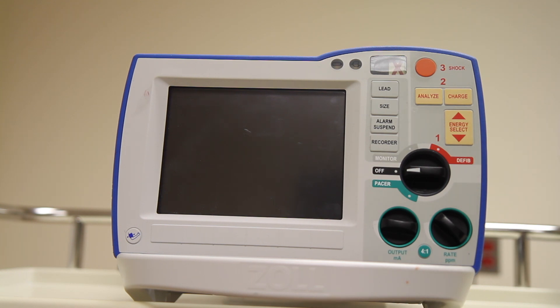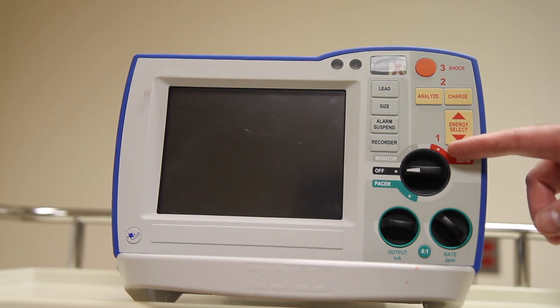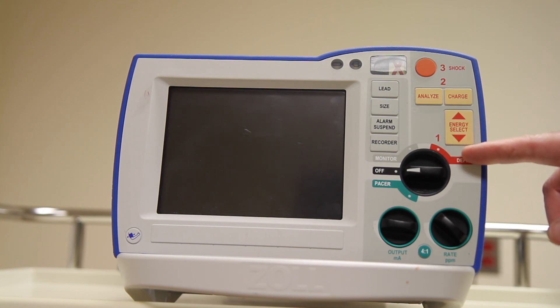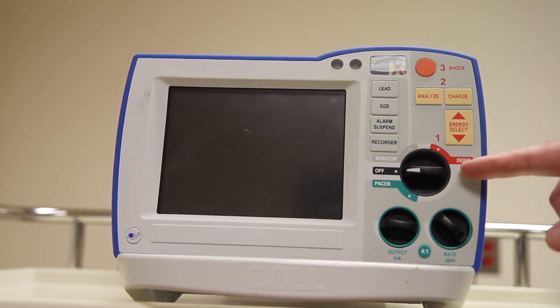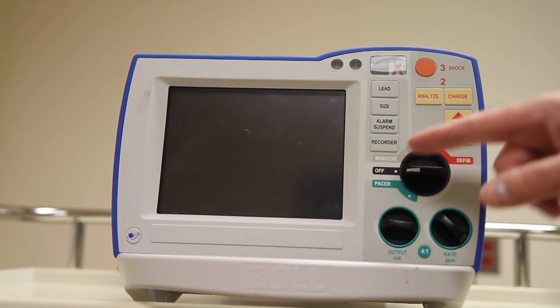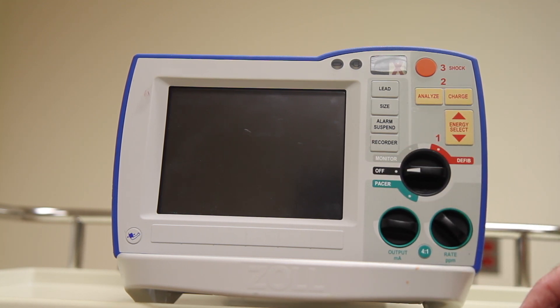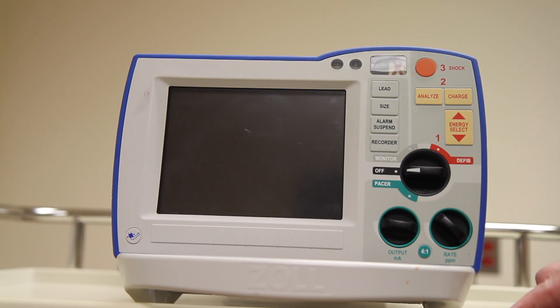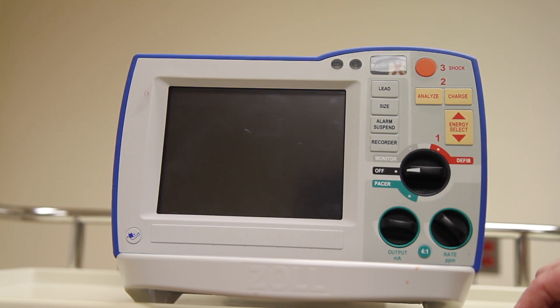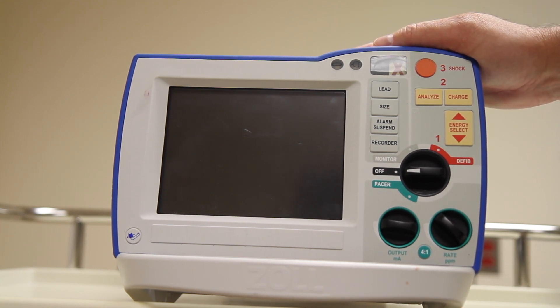Let's start with the dial that corresponds with number one. This turns the device on and selects one of three modes: monitor, defibrillator, or pacer. When we switch into monitor mode, the unit is going to look for cables attached to the patient — you should have them attached already.